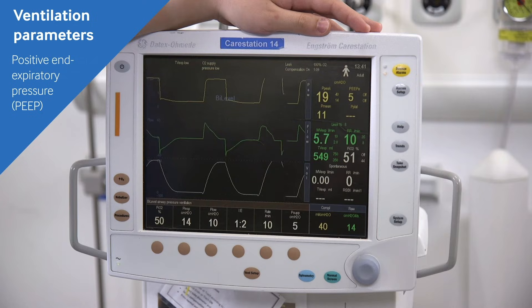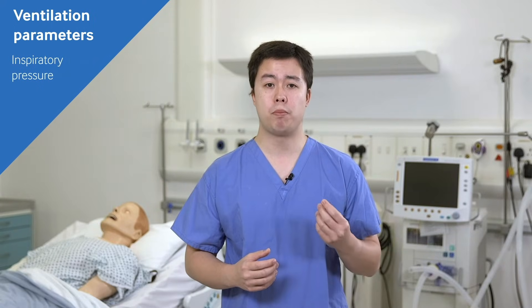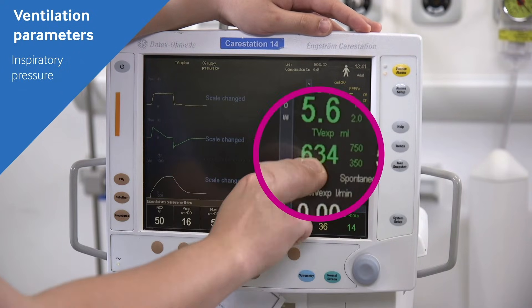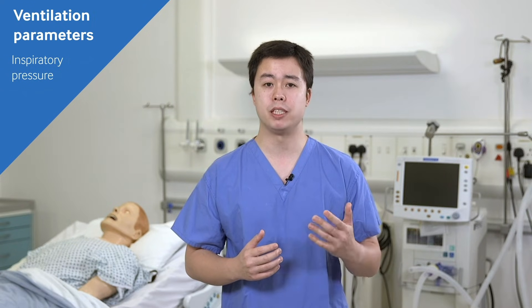You can monitor the effect of your changes in PEEP by looking at your saturations, your BP, and the airway pressures. The inspiratory pressure will determine what pressure on top of your PEEP you will be delivering during inspiration — essentially the pressure of the inspiratory breath. This can be titrated up and down to alter the tidal volume the patient is receiving. Excessively high pressures are to be avoided because of the risk of barotrauma — damage from high pressure — and volutrauma, which is damage from over-distension of the alveoli with large volumes of gas.